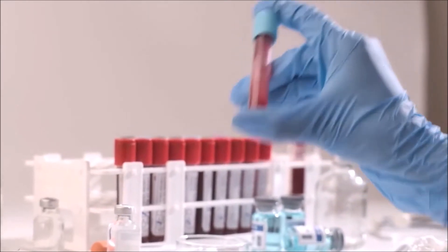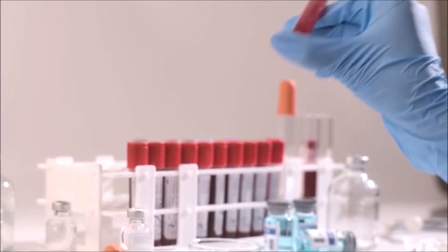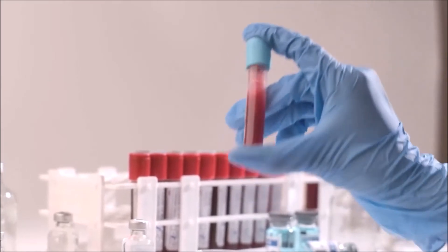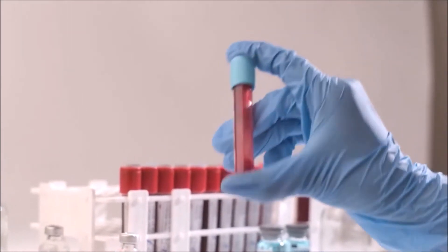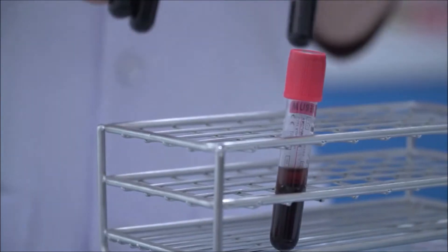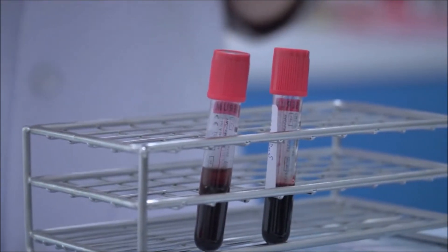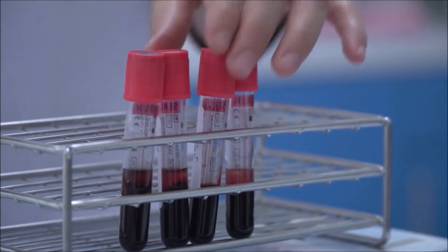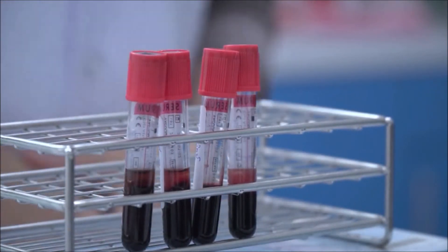After watching the video, the veterinary technician should feel more confident in recognizing the various blood collection tubes available at the in-house laboratory of their veterinary hospital. Remember that we can improve efficiency and laboratory skills by choosing the right blood collection tube. For the veterinary student, the following presentation can serve as a review for the NAVLE and the ECFVG certification program.